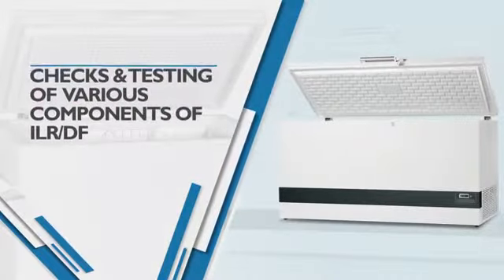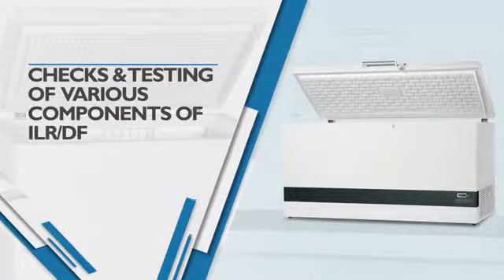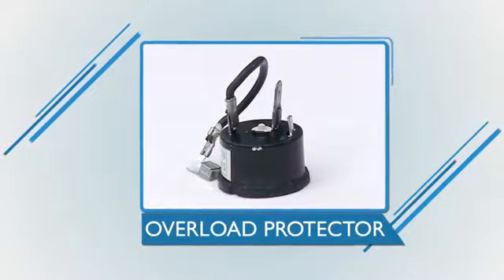We will talk about the checks and testing of various components of an ILR or DF in this video. Let's begin by testing an overload protector.